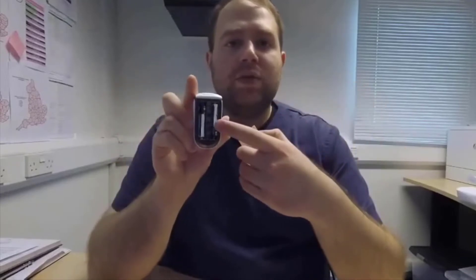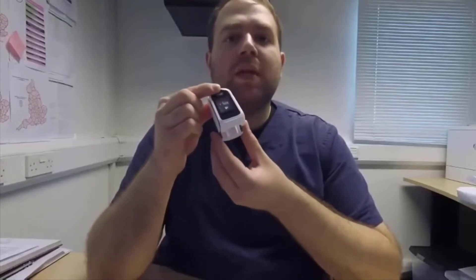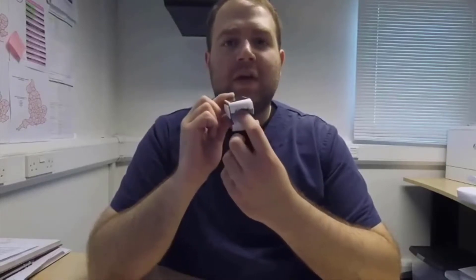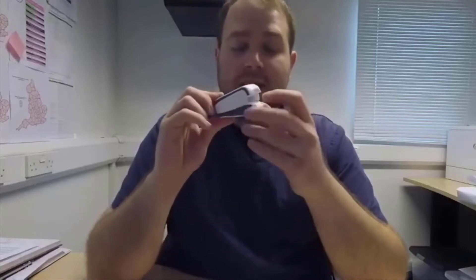The device itself is basically a clip. It has a screen on the front, a touch control, and a button on the back that's just to open the battery compartment — it uses two triple-A batteries. To turn it on you just need to open the clip. Inside, the material looks like silicone or some sort of silicone, and it's pretty comfortable. It has a sensor on the back.